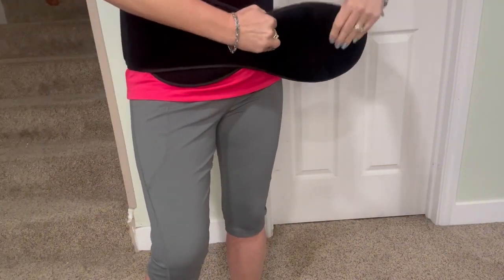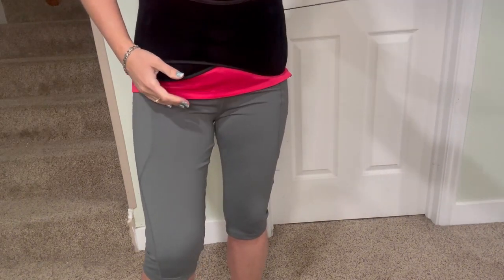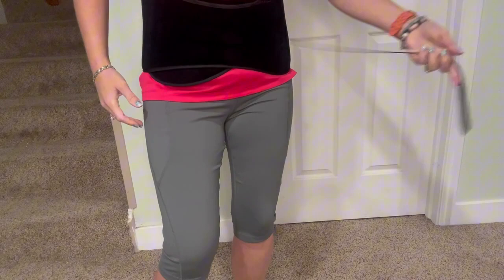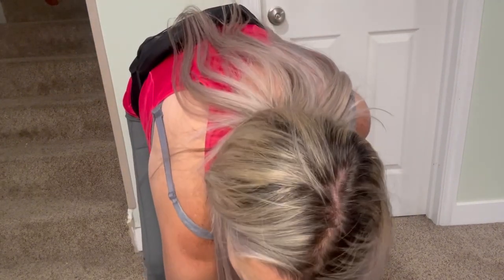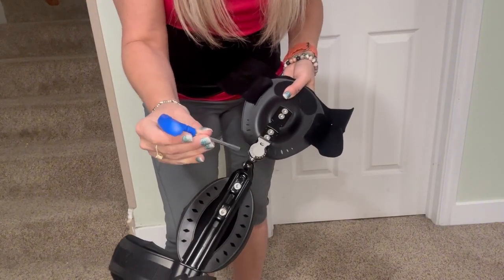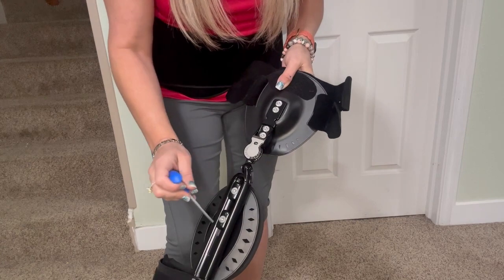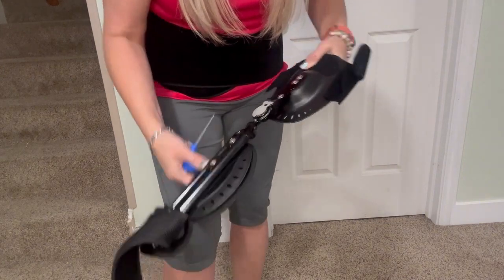There are many different uses for this hip abduction brace, so make sure that you talk to your doctor about whether or not it's right for you. It does have dual joints for hip flexion and abduction control, and has a soft abdominal band and thigh band that suits most people.